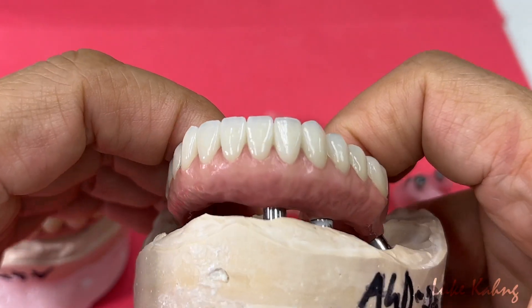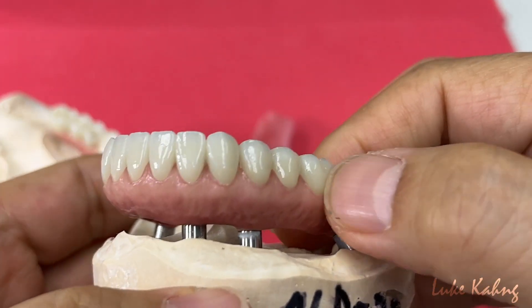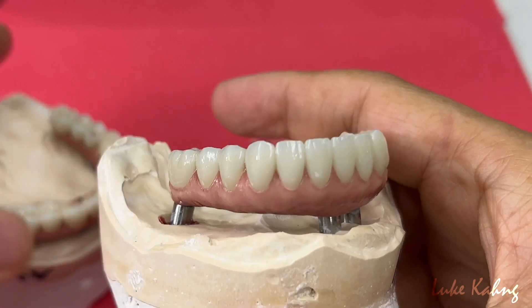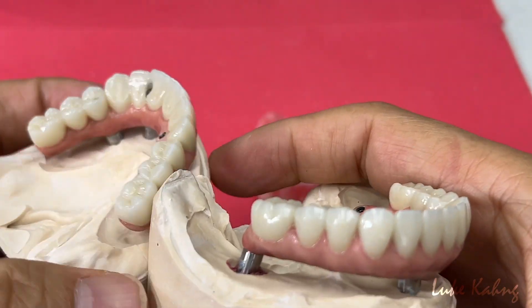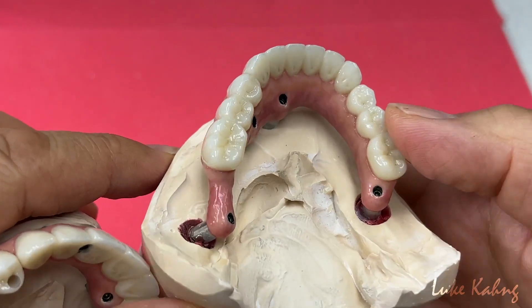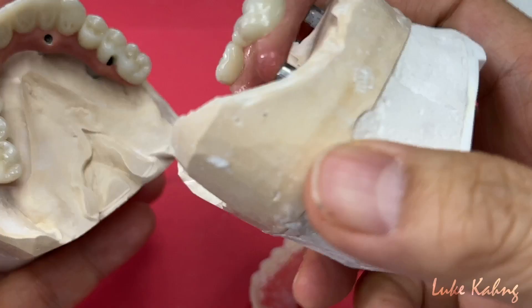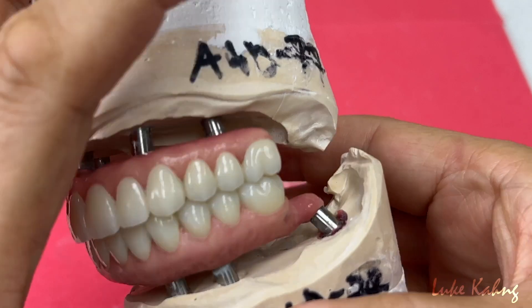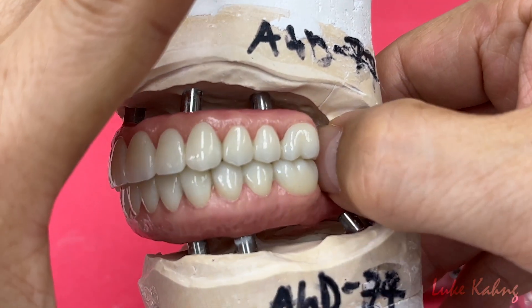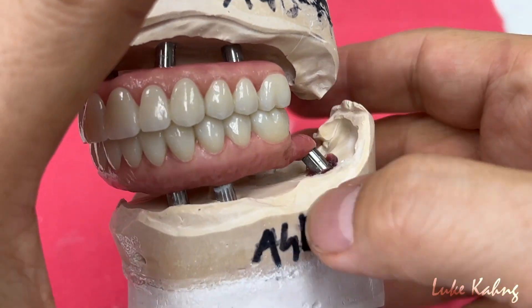This is the finals — just like another piece of art. Just like the great embrasure looking. The most important thing is this one is ceramic. There's no acrylic involvement — that's the best. The other crazy part is the implant site. Oh my god — that one is not going to work unless they made it really thick or they have to make another teeth. This area — it's a long pontic. Long pontic, huge pontic, different angles, implant.